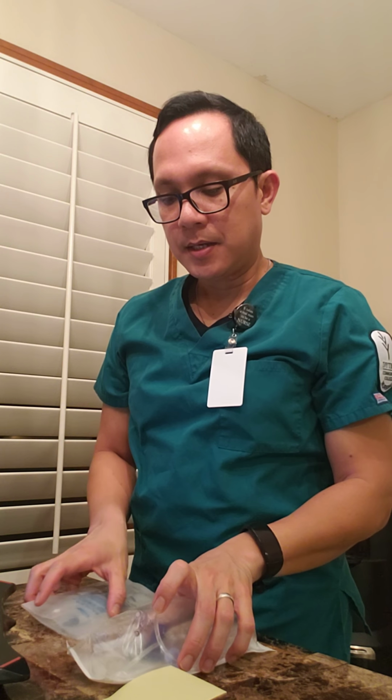Hi, my name is Ed, and today I'm going to be showing you how to spike and prime an IV tube. So I'm going to be the nurse for my patient in 501 today. The doctor has ordered an IV solution for her.